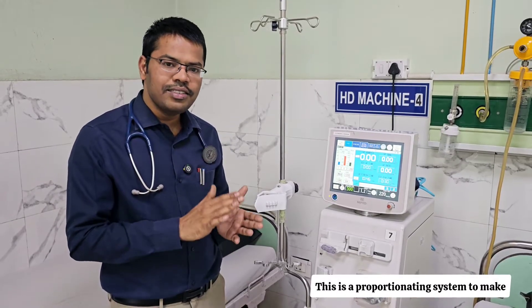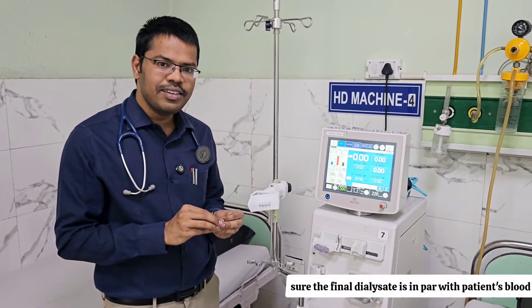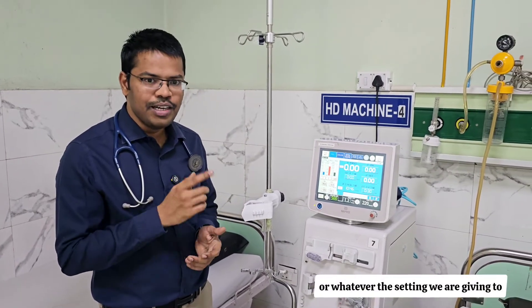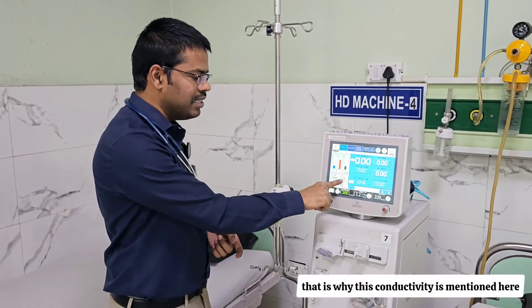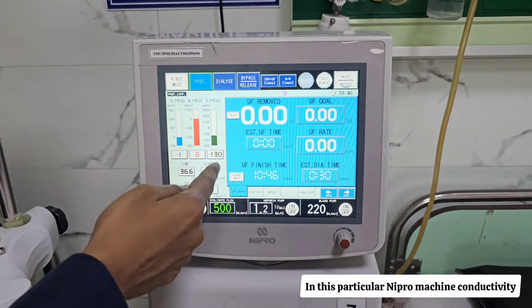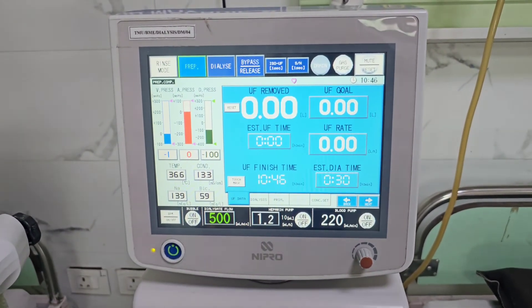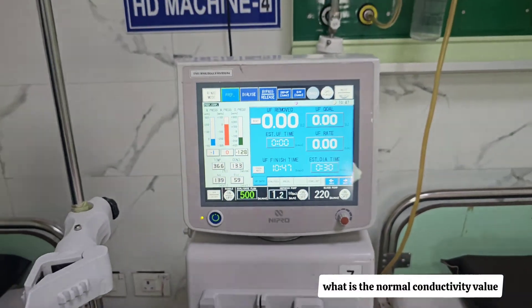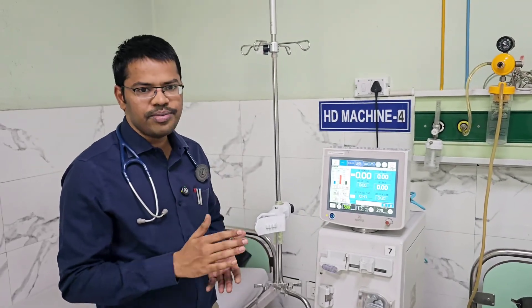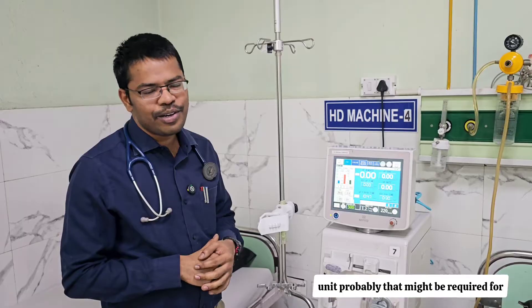This is the protection mechanism so that the patient is not exposed to higher or lower electrolytes, as both have detrimental outcomes. The proportionating system ensures the final dialysate is in line with the patient's blood or whatever settings we configure. That is why conductivity is displayed on the home screen of this Nipro machine. The normal conductivity value for most machines is 12 to 16 mS/cm (milliSiemens per centimeter).